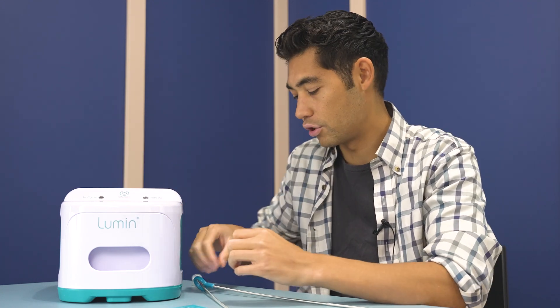When it comes to your CPAP, you want to use things that act both as lubricants and as cleaners. That's why we recommend just a mild dish soap — Dawn, Palmolive, whatever mild dish soap you have. A bit of that is going to act as lubrication so the brush isn't scratching your tube, and it's also going to break down those biofilms and allow you to wash out that bacteria properly.